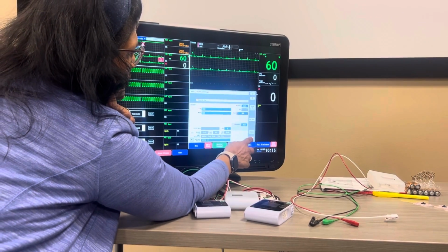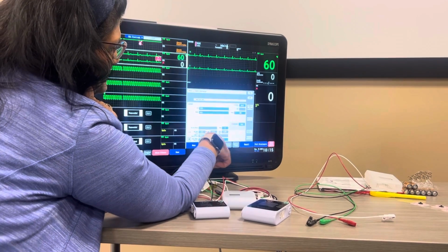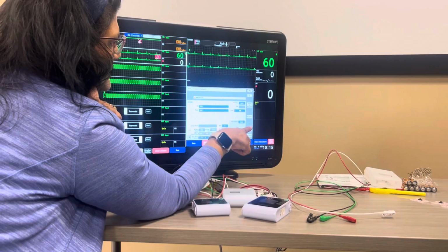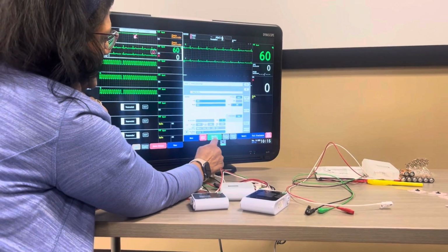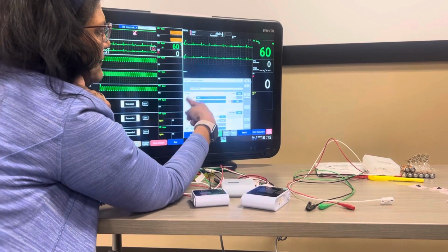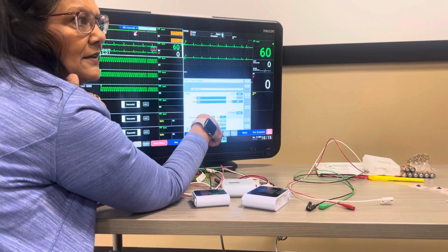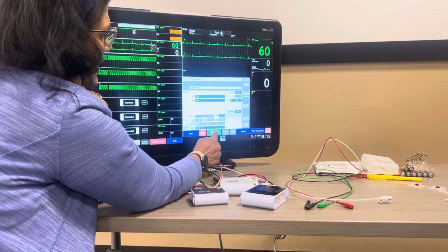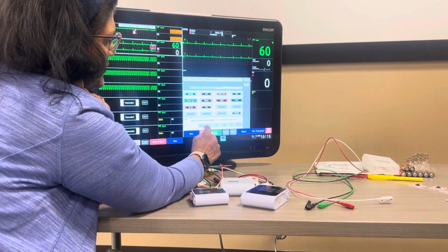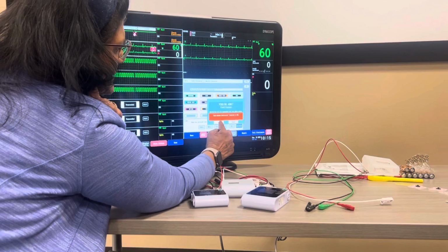And then here's your discharge button. And you'd go ahead and hit discharge. Any questions with admit and discharge? Nope, okay, moving on. Monitor suspend. Now let's say that we had the information that the patient's coming in, but they're not here yet, okay? So I go ahead and fill this out. I go to monitor suspend and I can hit pending admit. And you can time it, but I don't know when they're going to come, so I'm just going to hit continuous, okay.